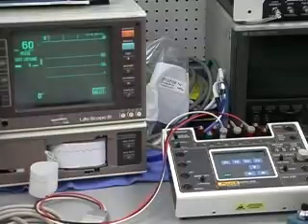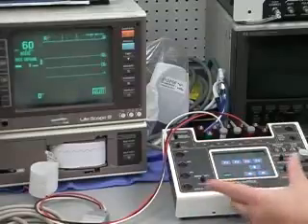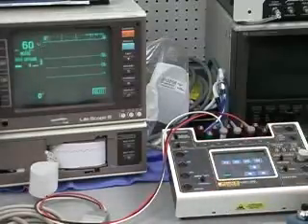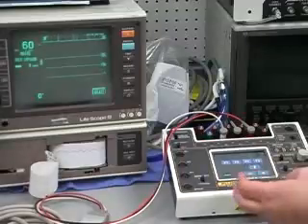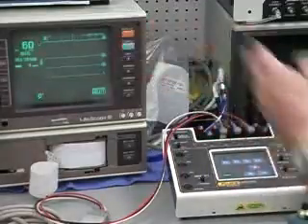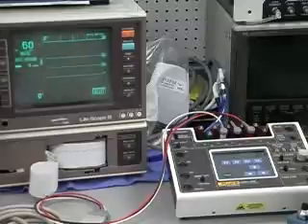But again, it's nice that in those very narrow selections, which are typically below what you would normally see for a cardiac cycle, you're able to very readily simulate it and see how well it can reject it. Because when you have a very narrow R wave complex, your rise times are very sharp.